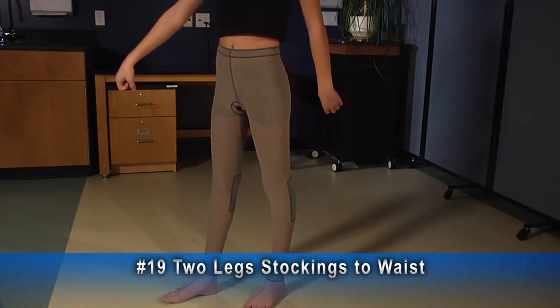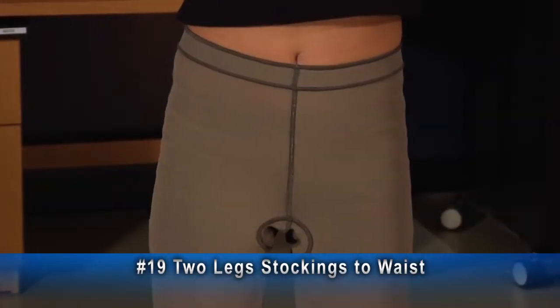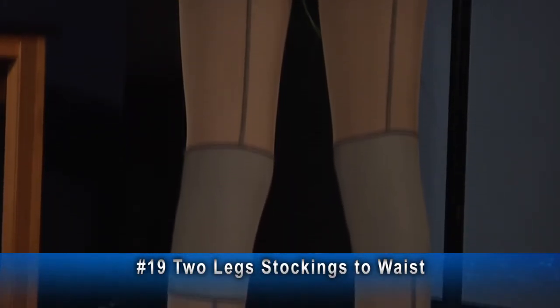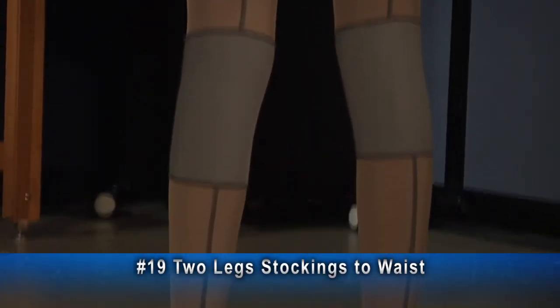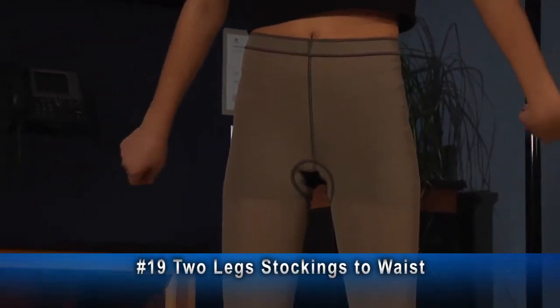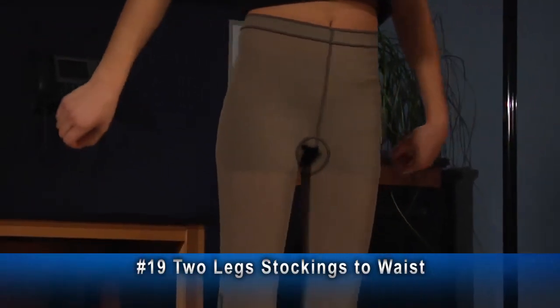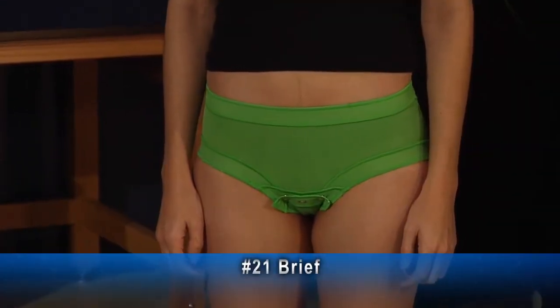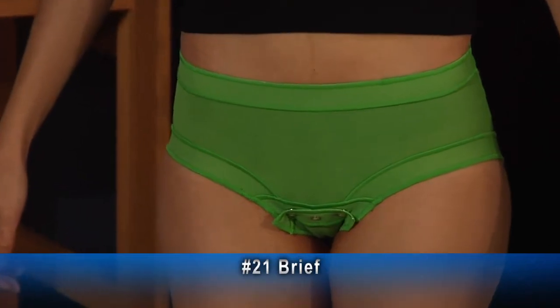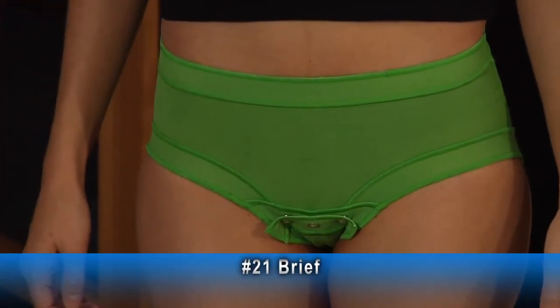This example, number 19, is two legs to waist and stops just above the ankle. It has an open crotch and posterior knee inserts, which help prevent irritation caused by fabric bunching in the posterior knee crease. The open crotch helps with bathroom needs if the patient can't get their pants down on their own. Number 21 is a brief with a snap crotch; the garment is also available with a non-opening crotch.